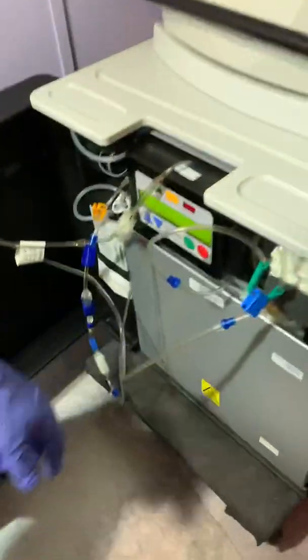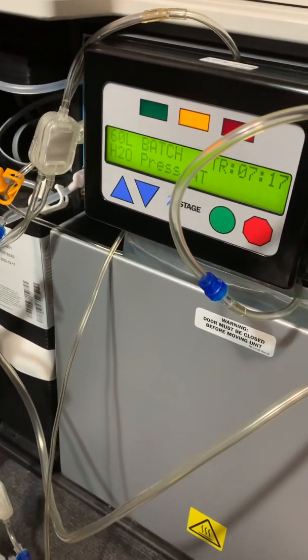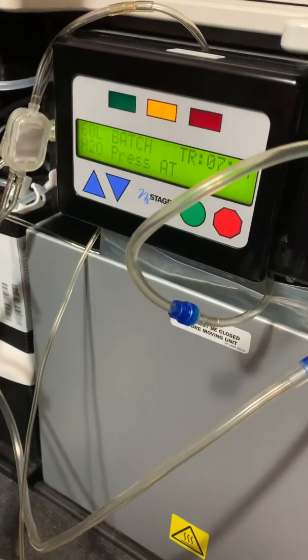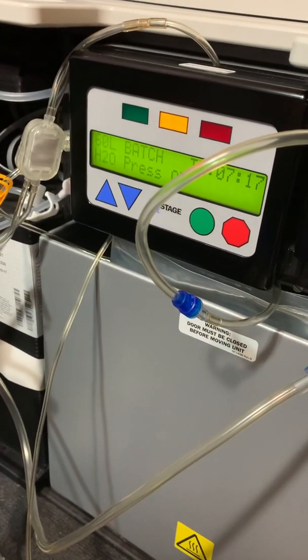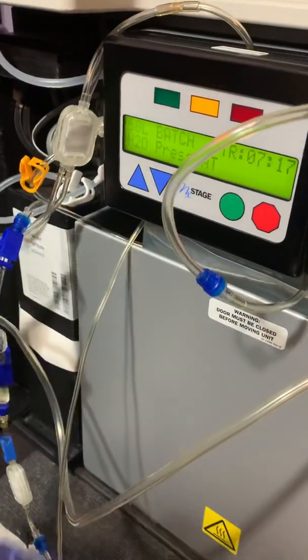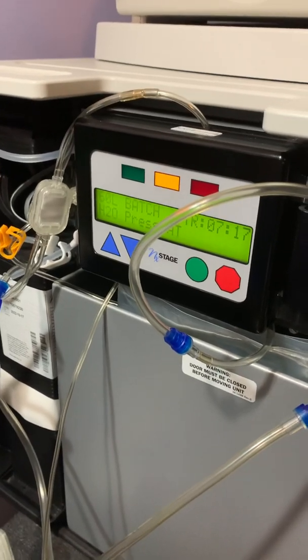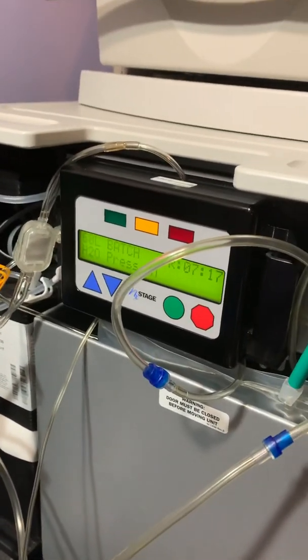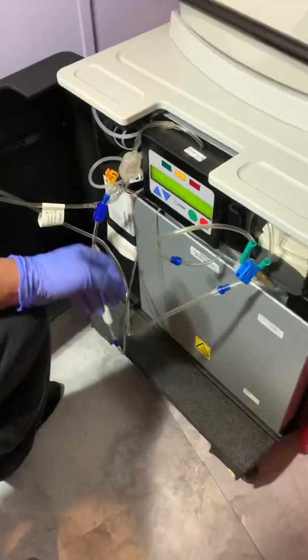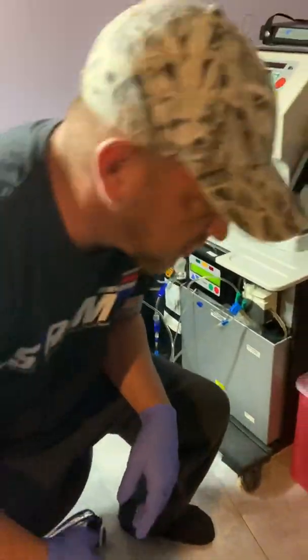Make sure everything's as clean as you want it to be, and then you push the green button that goes through its testing process. Sometimes it'll start right up. Now it tells you it's got seven hours and 17 minutes to make this batch of dialysate. It'll go through its testing. Sometimes you'll get an error that'll say pressure low or something — there's a simple way to fix it, but it only happens about half the time. Is it going at this point? It's going right now. It takes a few minutes to actually start making the batch.